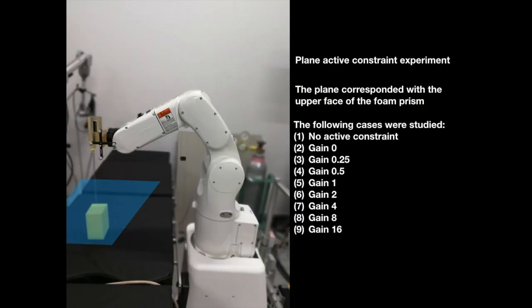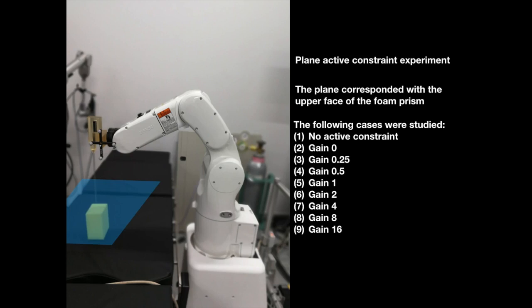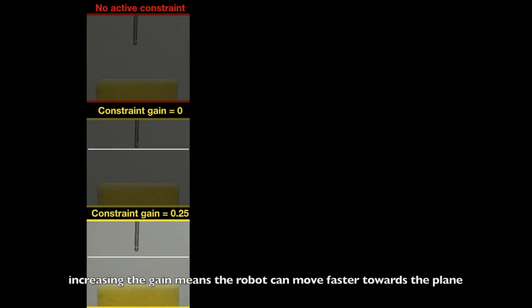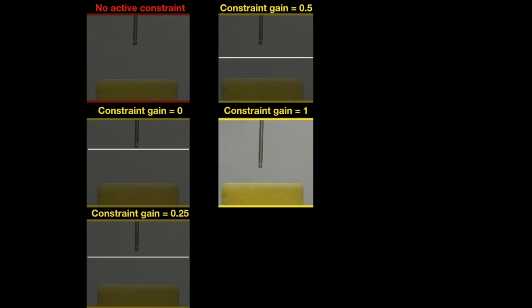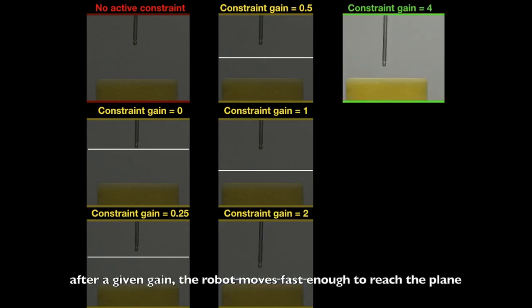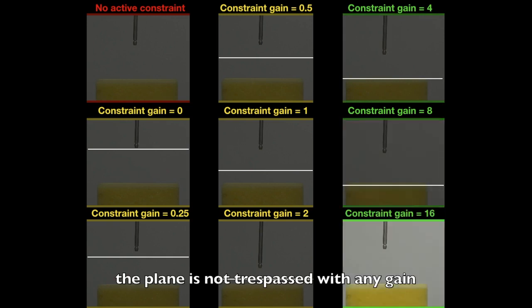Experiment A: Plane Active Constraints. The plane active constraint experiment is where the plane corresponded with the upper face of the foam prism. When no constraints are active, the robot goes to the plane. A zero gain means no motion towards the plane is allowed. Increasing the gain means the robot can move faster towards the plane. After a given gain, the robot moves fast enough to reach the plane. The plane is not trespassed with any gain.